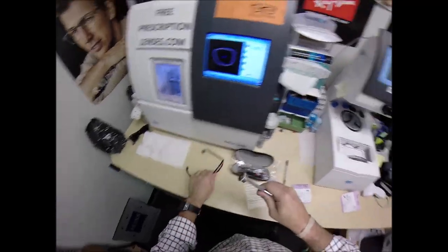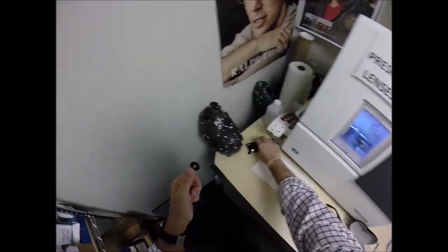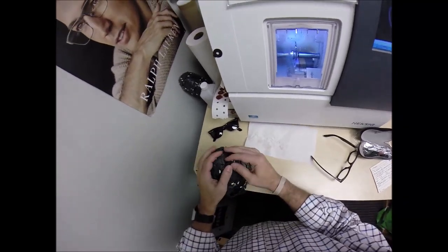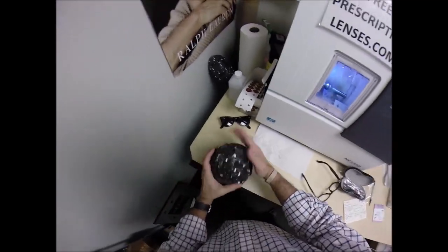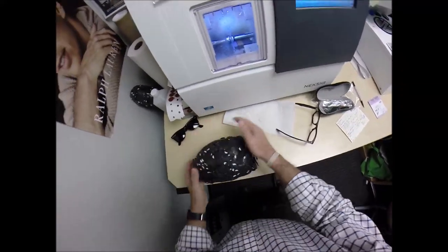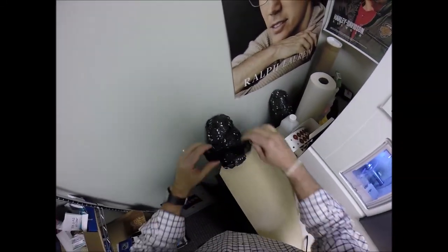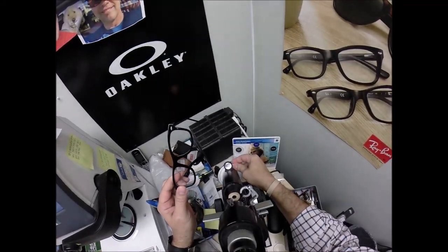Let's go ahead and take the block off, pull the sticker away, and add that back to my collection. Let's see where my sense-of-accomplishment sticker will go — put this one right there, cover all three. Now let's come down here to the lensometer, spin the axis wheel back to 155.